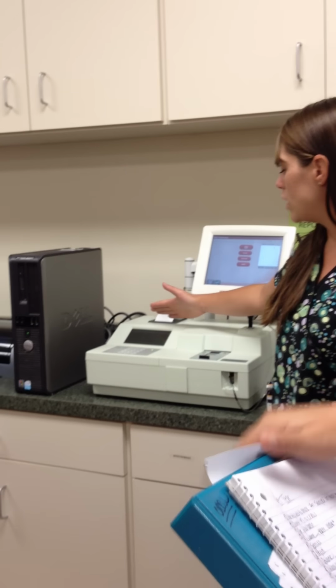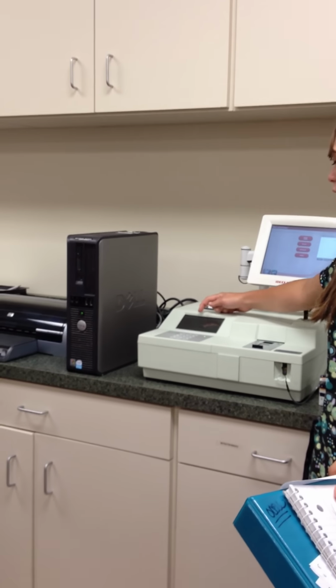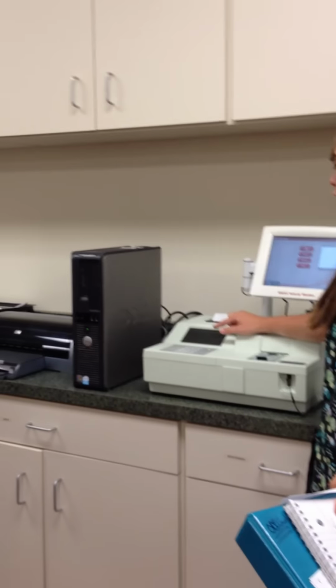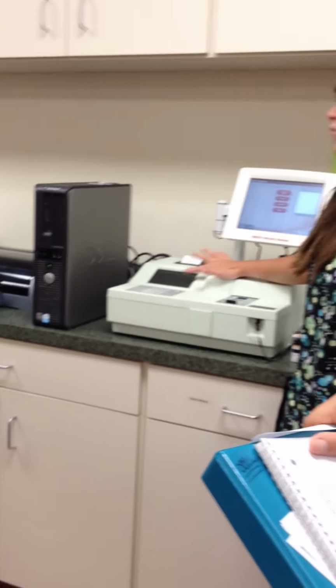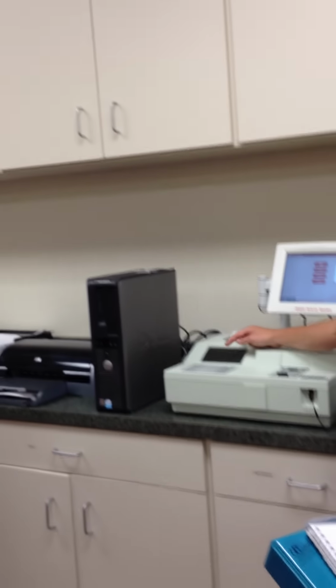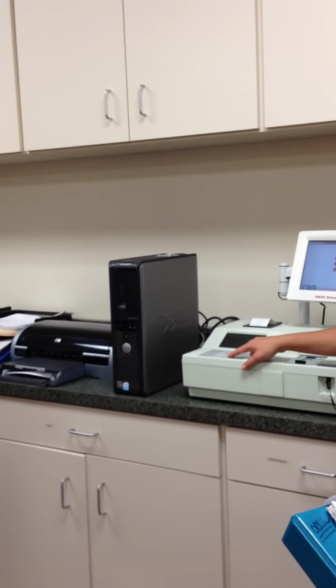All right, so once it comes up with this screen, you're going to make sure that it's accurate. We have Millie's name here. It's got the ID number, the USDA number. Everything is good there. If I had client first and last name in here, it would also give me that, but we didn't do that. We just put in the rescue. All right, so it says C to cancel, E to continue, so we're ready to continue. We're going to press E.